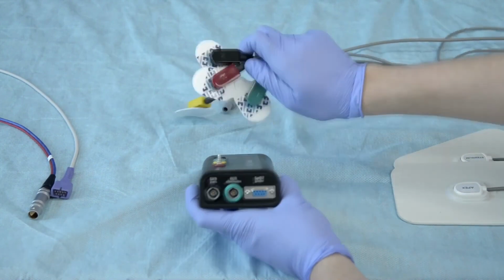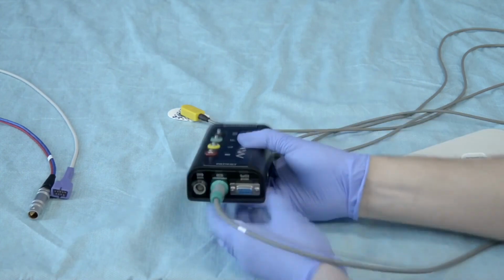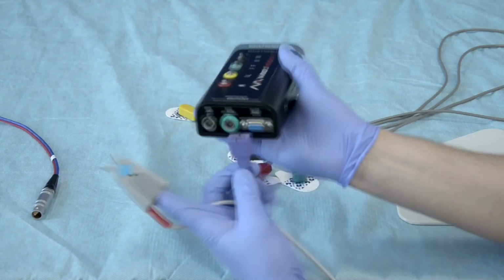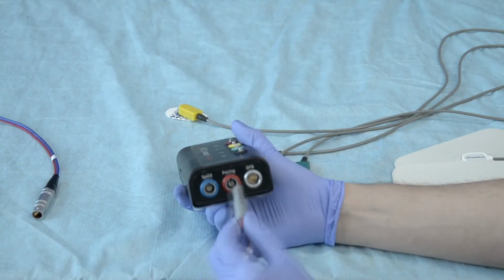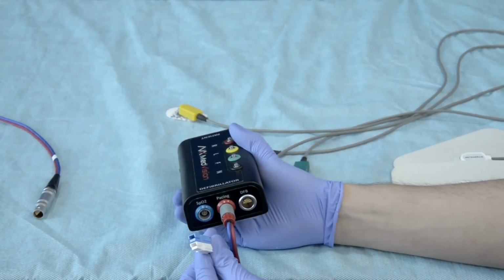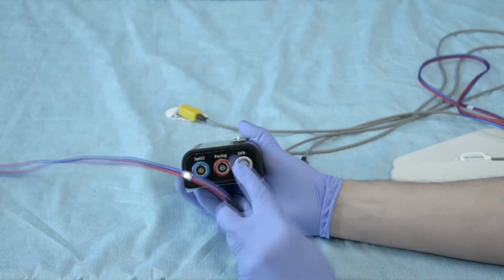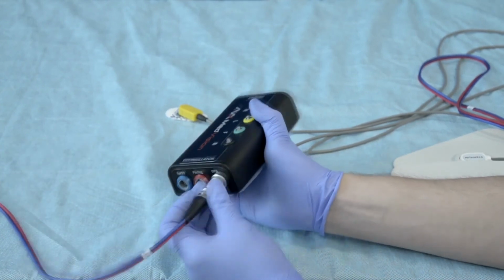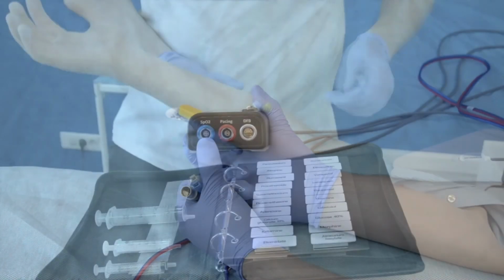Also here we have our ECG cable connector, same. Align the rail and pull gently to remove. And the last one is the SpO2 probe connector that only goes in one way. On the side indicated as defibrillator, we have the pacing port that connects to a defib. A port for connecting a defibrillator itself. And an SpO2 port for the cable that goes to the real patient monitor.